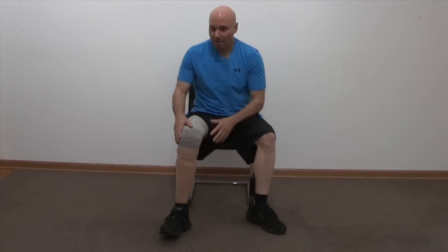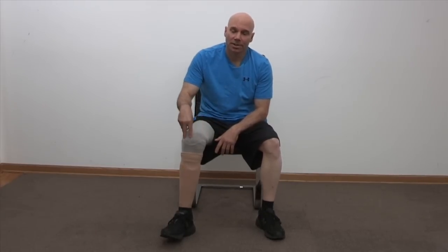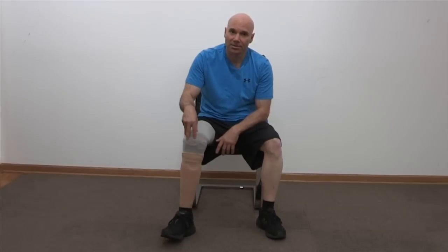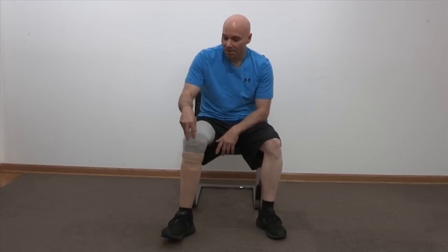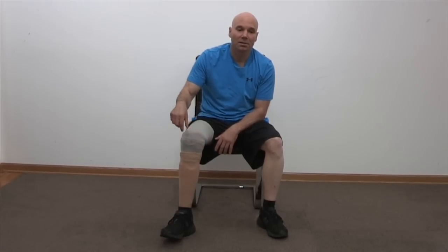The EMS system was created by Carl Kaspers in Minnesota. I know he has a website — I think it's emssocket.com. McKinney Prosthetics in Gurnee, Illinois is the only prosthetic company in the Chicagoland area currently offering the EMS system with the expertise to fit it. If you live just over the border, Paramount Prosthetics in Mount Pleasant in the Milwaukee, Wisconsin area also has the EMS system. I believe Paramount Prosthetics and McKinney Prosthetics are the only prosthetic companies that can do the EMS for above-knee amputees.